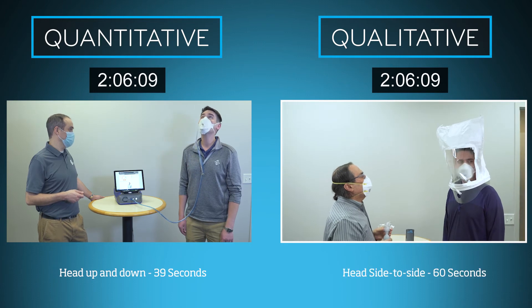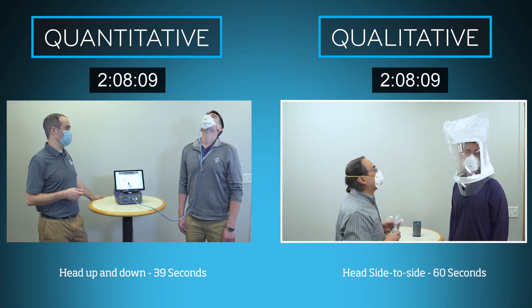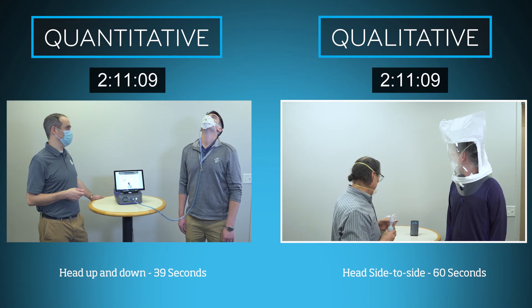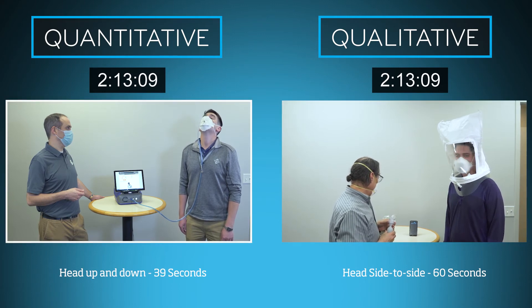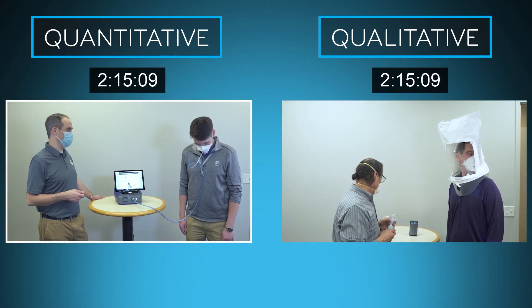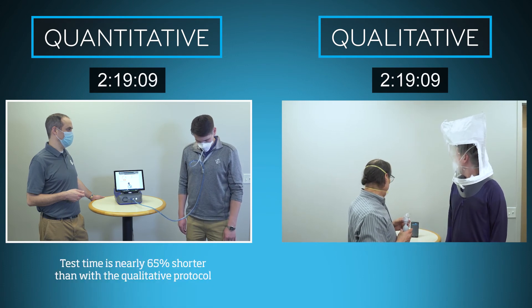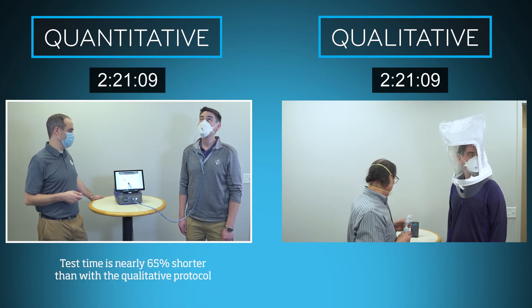Now the qualitative test moves into exercise 3: 60 seconds of moving the head side to side. The PortaCount fit tester reduces the fit test down to just four exercises, and a total test time that is nearly 65% shorter than the qualitative fit test protocol.